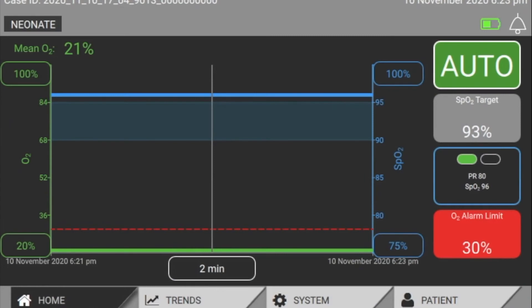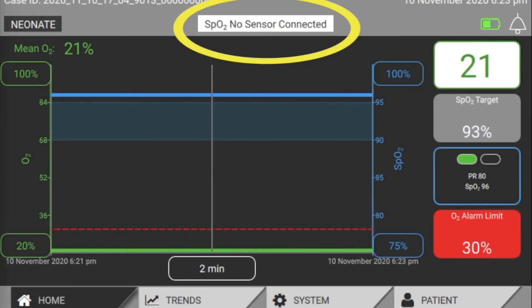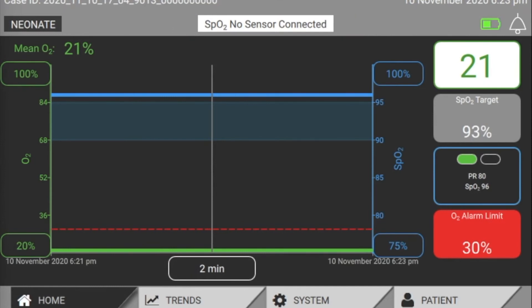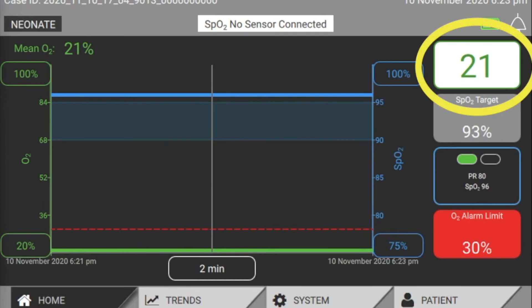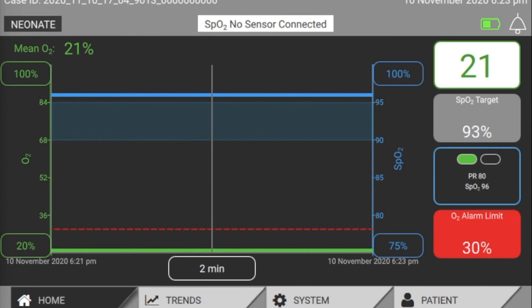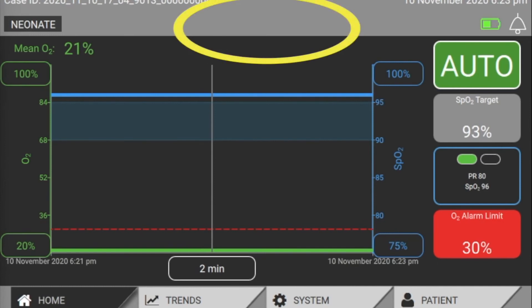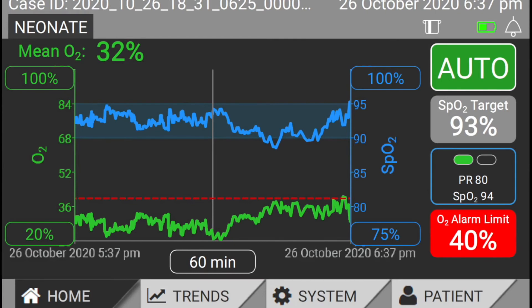If the SpO2 signal is lost, you can see an advisory message on the top of your home screen. As discussed earlier, the O2 is paused at the last calculated value as displayed in the mode button. If the situation persists longer than two minutes, you will get an audible alarm and OAM will deliver the fallback O2. If the signal returns within these two minutes, the algorithm will take over again, clear the alert, and calculate an appropriate O2 value. Please always remember that OAM is a controller, not a monitor. You should always continue to use your primary patient monitor for SpO2 alarms. Check your backup and alarm settings on a regular basis, and also regularly check that your two different SpO2 readings are closely matched — do this particularly after manipulation of the probe sites. If you see a significant discrepancy, please reposition the probes.